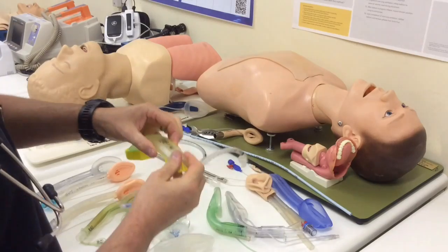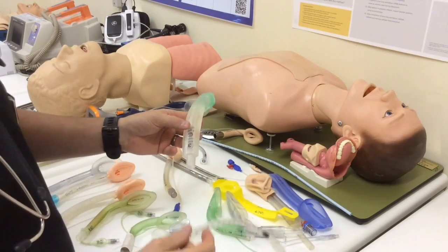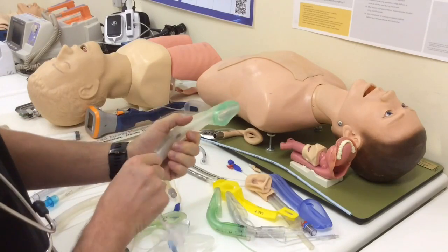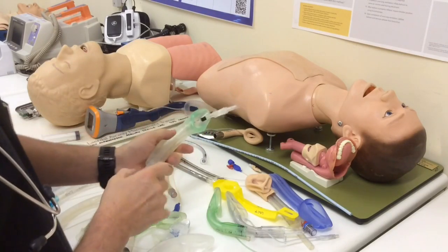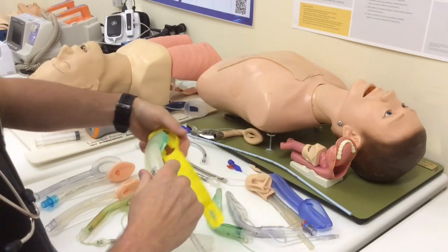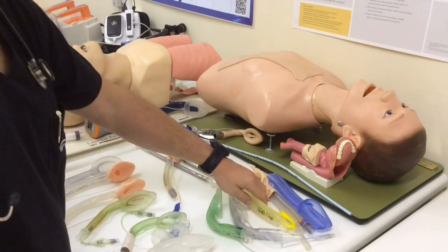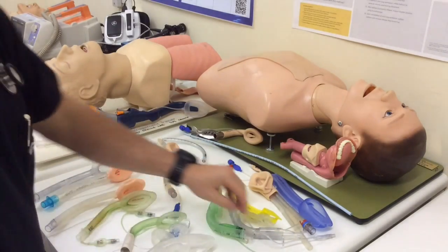Another example — here's a size 3 i-gel, for a 30 to 60 kilo patient. You can see a size 6 tube passes through here with very little difficulty whatsoever. So the selection of the device, if you're planning to intubate down the line, is quite sensible. But if the device is already in, then you've got no choice and you have to make do.